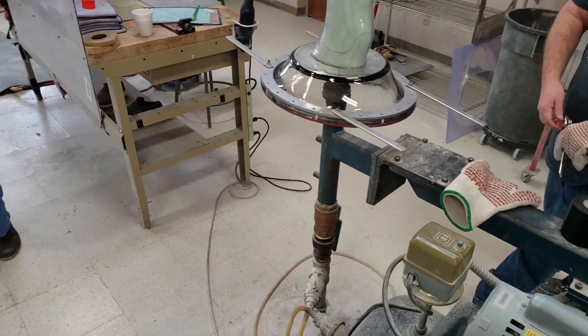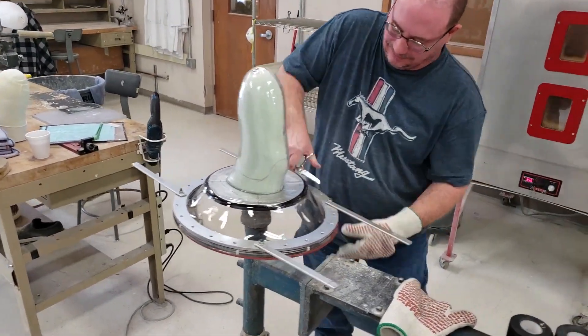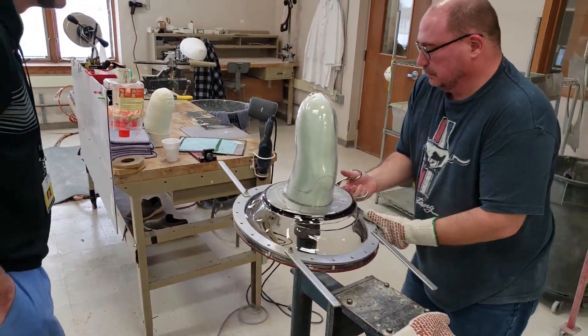As of recent, 3D printing is slowly building some momentum in our field, but as of yet it's not readily used on a normal basis.